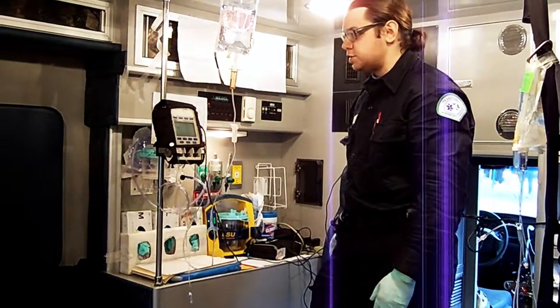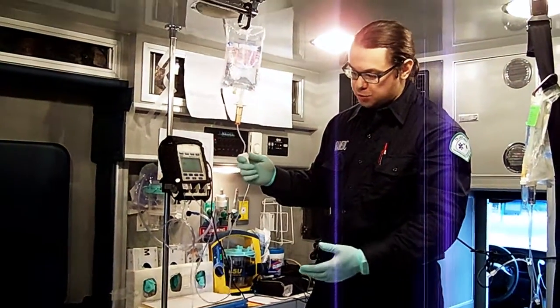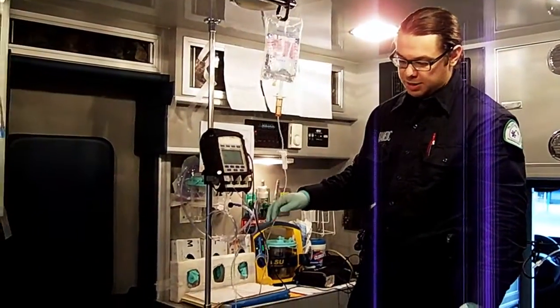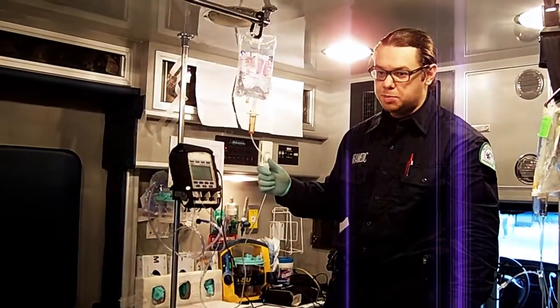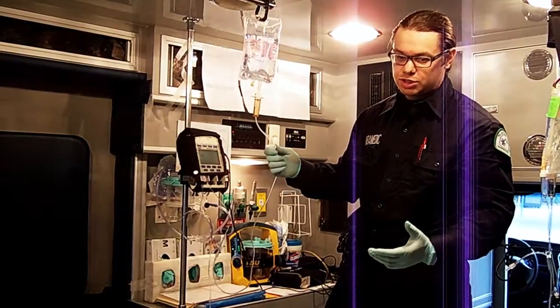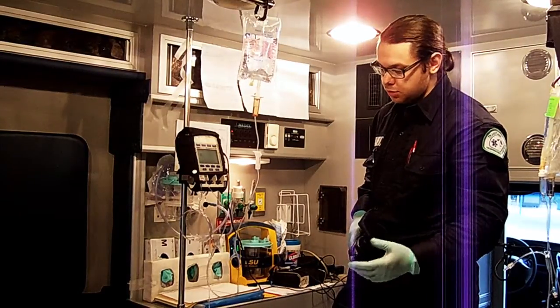So that was your basic setup. In this scenario, the patient did not require time-sensitive continuous infusion — meaning if the pump was off for a minute or two while you flushed, no deleterious effects would occur. This applies to fluids like normal saline or heparin. However, if you're infusing vasopressor medications maintaining blood pressure and the patient is so sick that their BP is 60 over 40 or MAPs are in the 50s, you do not want 2 minutes off the pump as it will drop their blood pressure immediately. Now I'm going to show you how to set this up for vasopressor medications.